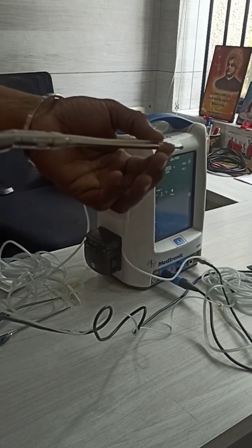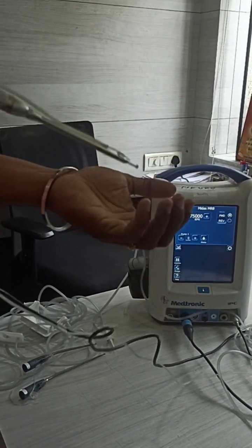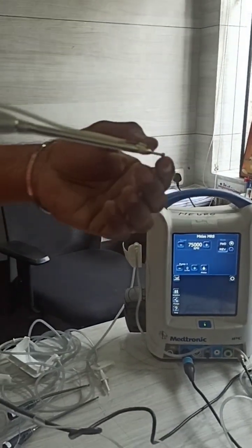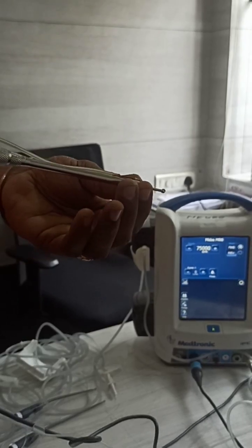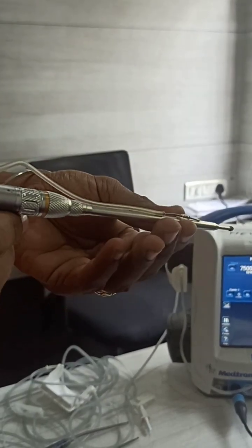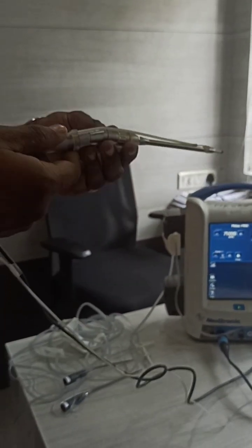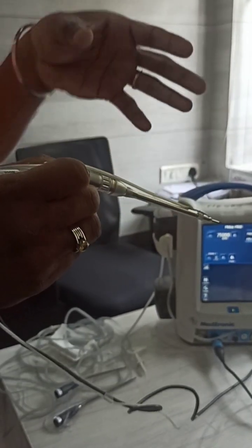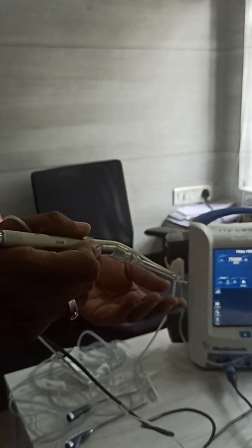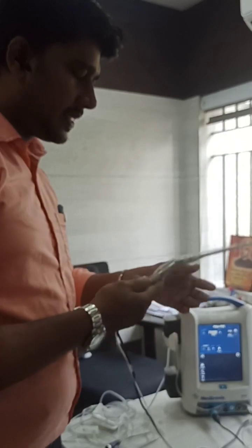Here you can see that the irrigation is externally connected. If you are doing open procedures it works well, but for endoscopic or minimal endoscopic surgeries, this irrigation tube may get disturbed in position. For example, if you are in a narrow deep area and insert it, it will come out and create a disturbance. Sometimes the tube may come out and due to angulation difficulties you cannot reach the target area. This attachment is specially designed for open cervical procedures, open skull base surgeries, and other reachable areas.